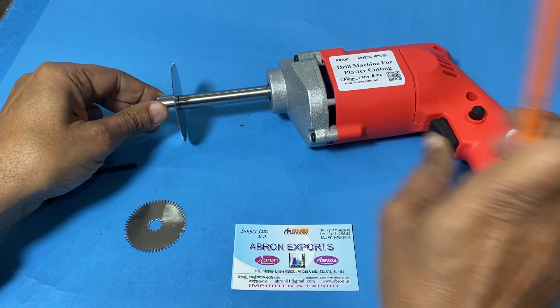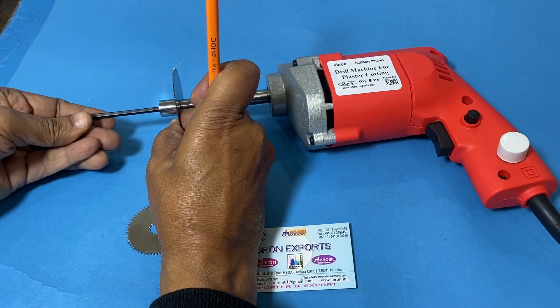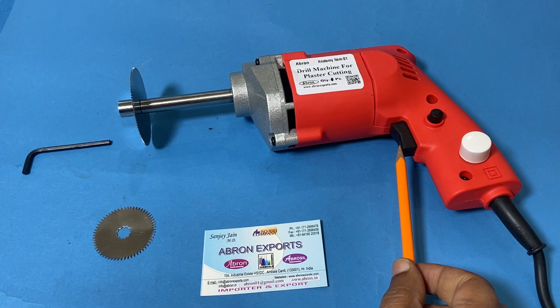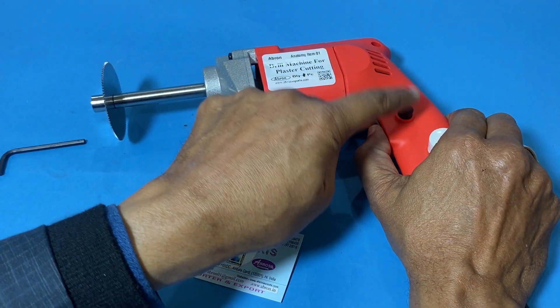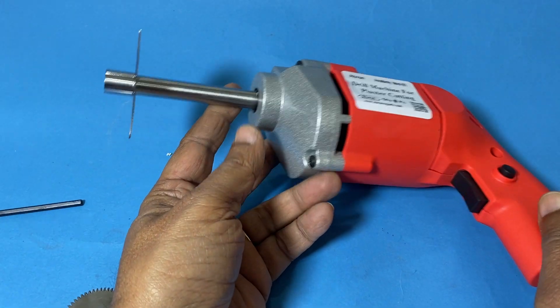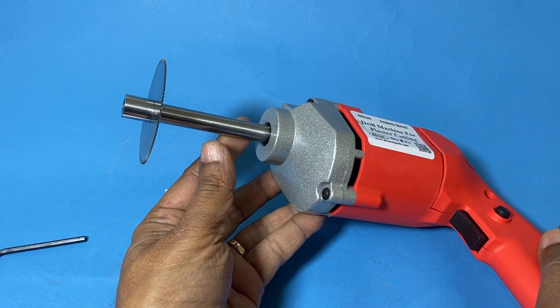A key is provided and two cutters are there. Once fitted, you have to tighten it properly. There is an on/off switch — this is continuous if you push it to stay on. There is also a speed control, and you can see this is vibrating only, so that the plaster will be cut with no damage.